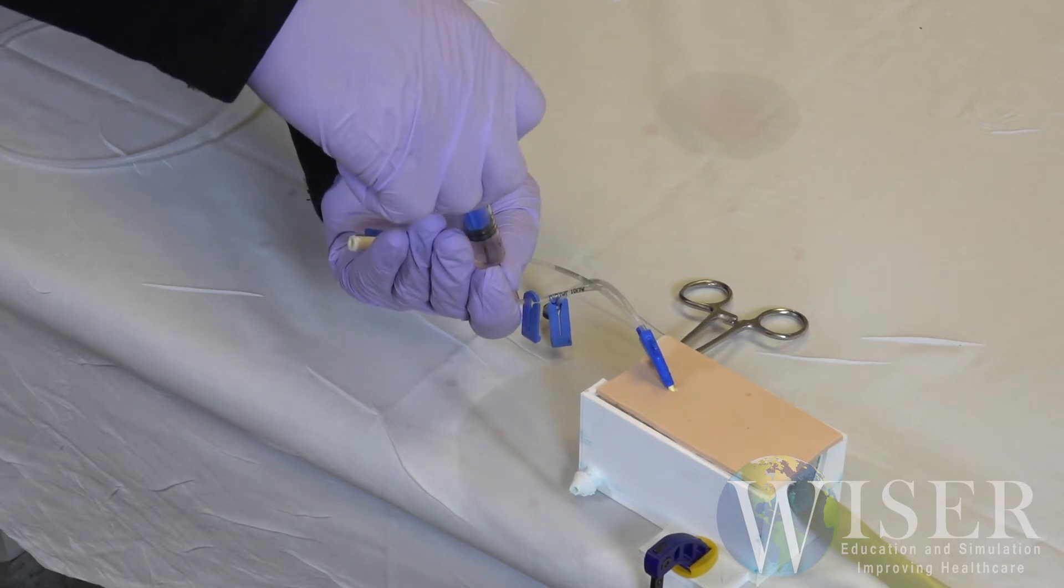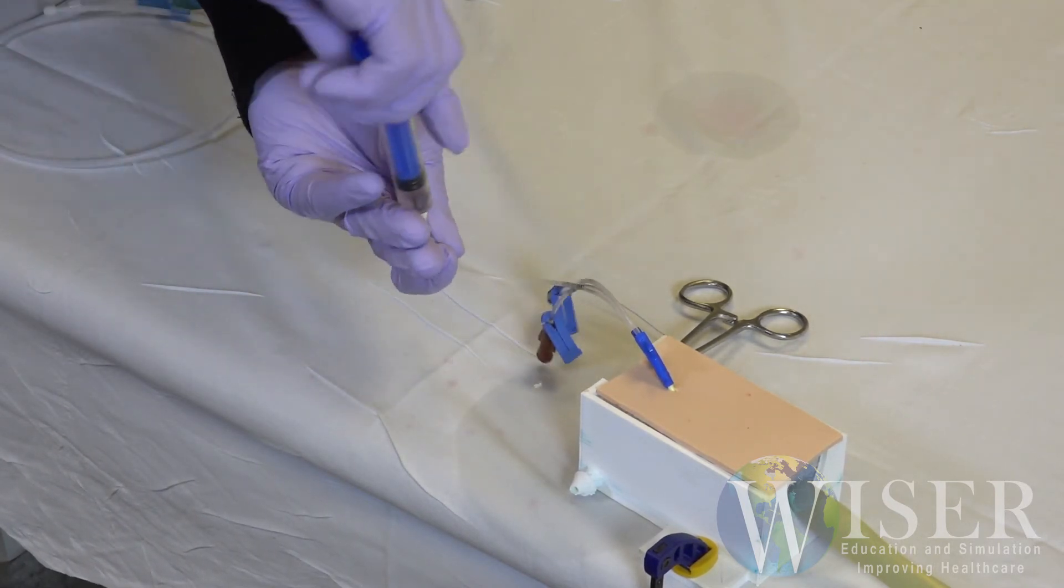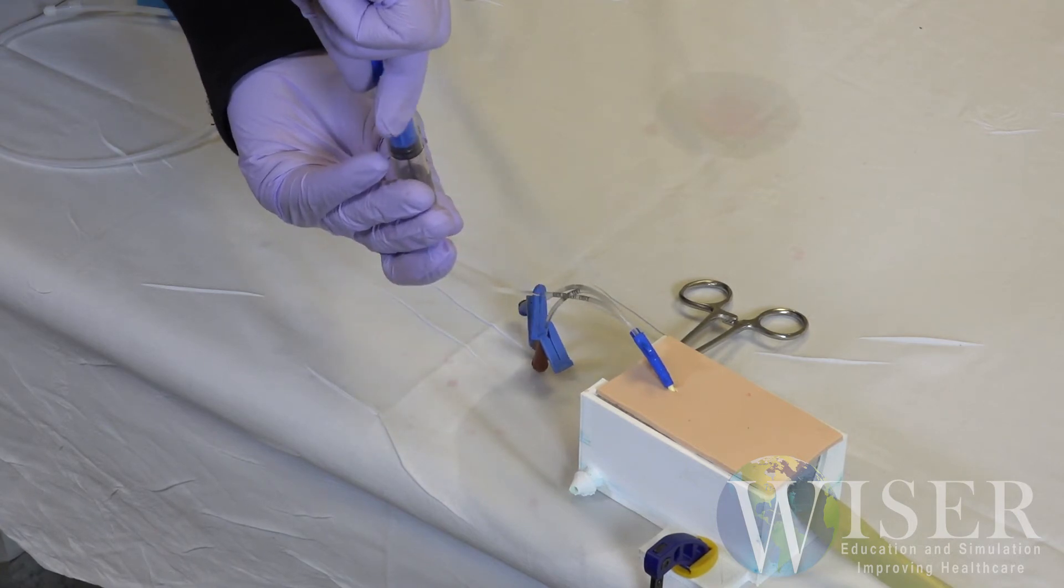With the help of the simulation experts at Wiser, you can provide high-quality and cost-effective procedural skills training.